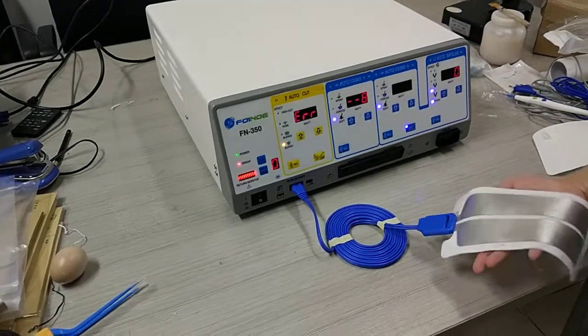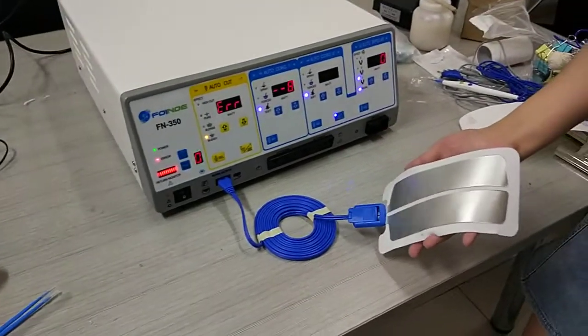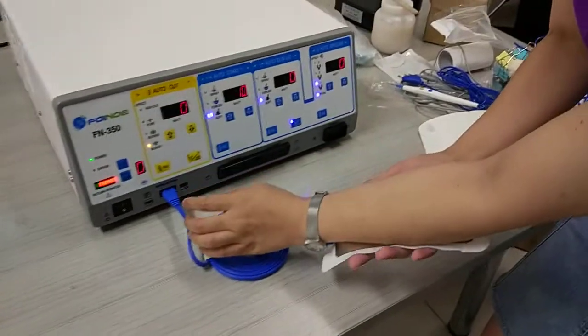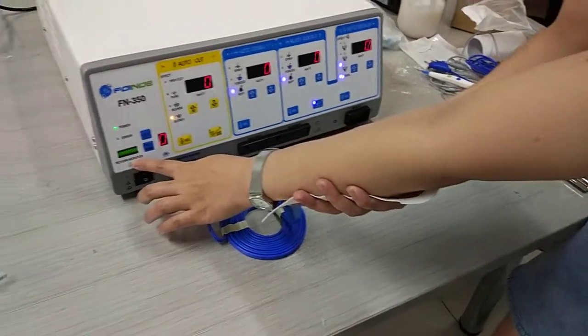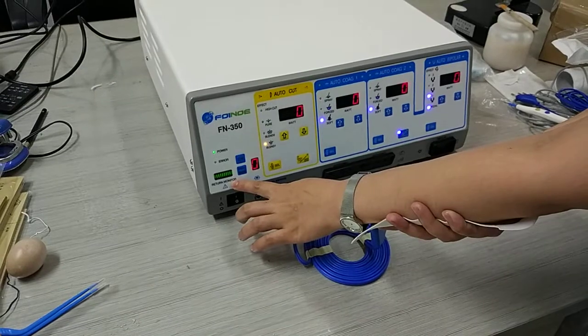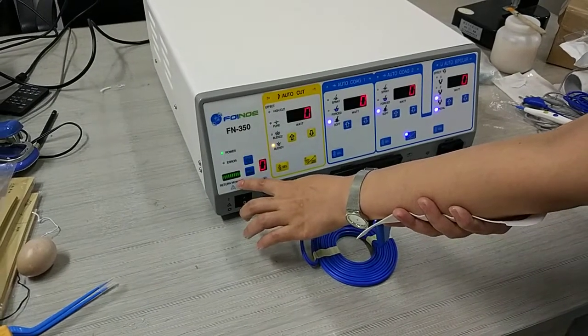Then we try to test this, whether it's connected or not. This is a return monitor to see the connecting percentage.